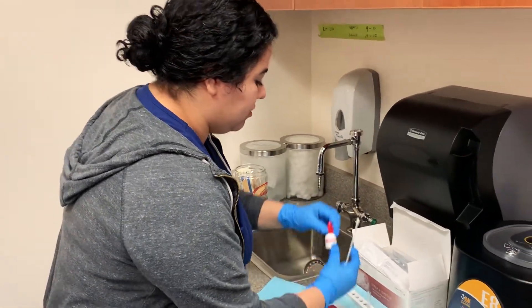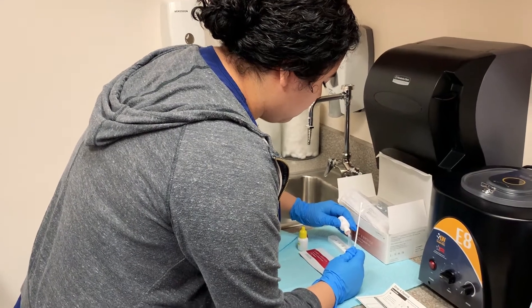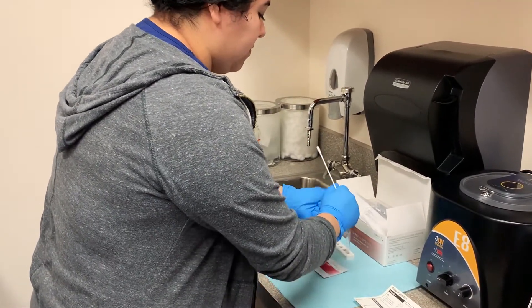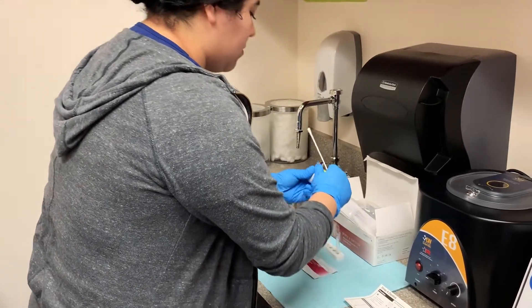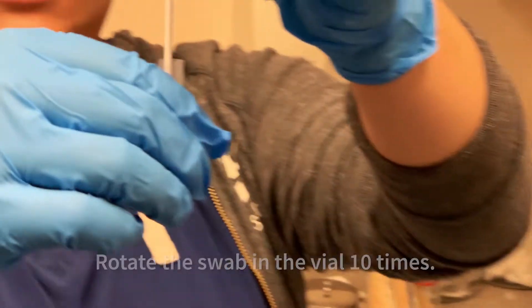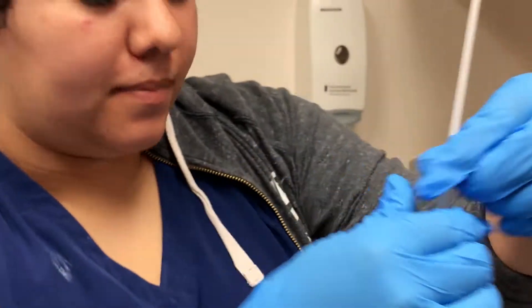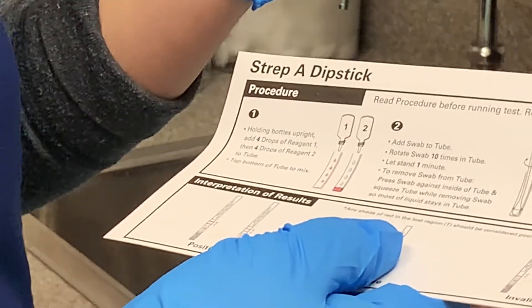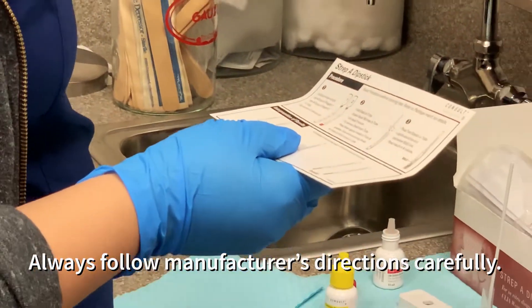So this is a solution. Each brand is a little different. This one is asking to do four — one, two, three, four — and this one as well. Each brand is different, so the solution: some brands might say three drops, others might say four, up to five, just depending. And then of course for a minute — they all must be the same.